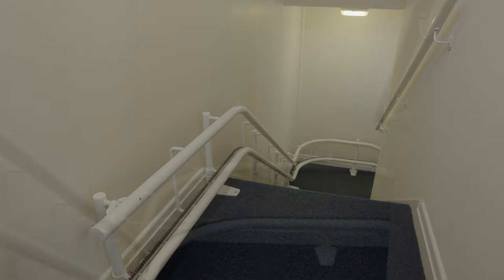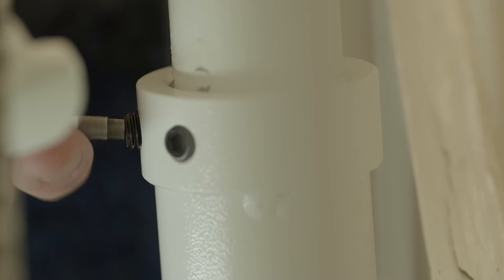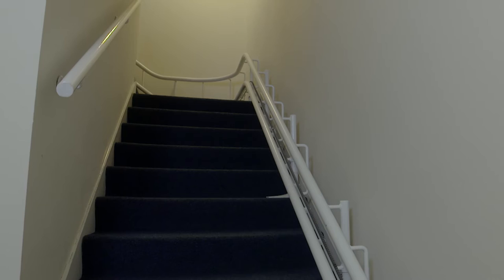Once the track is in the appropriate position, fit and secure jointing bolts to fasten each rail together. Level each rail section by untightening the grub screws in the bases. Ensure the track is level and the bases sit on the steps. Then re-tighten. Repeat this on each section.